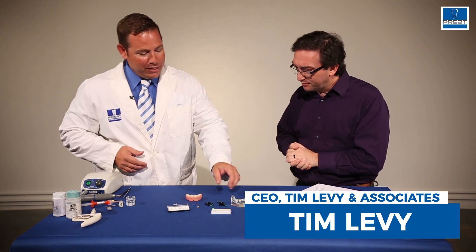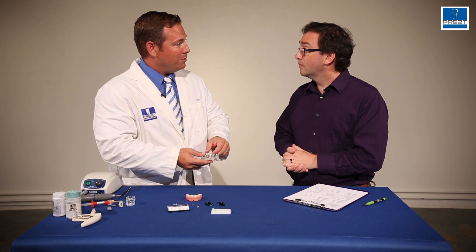Chris, welcome through everything we've got here on the table. So what we have here is a Hader bar case. The Hader bar is the most widely used retentive element on bars in the world. It's basically a system where a clip snaps over the bar to hold the prosthesis in place.